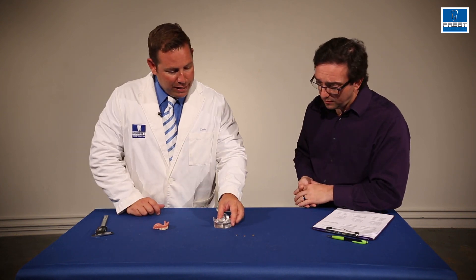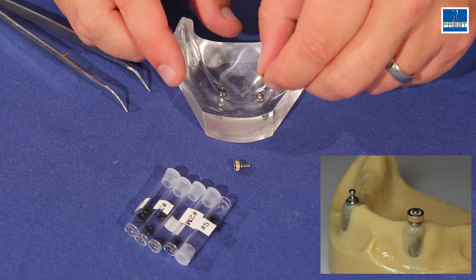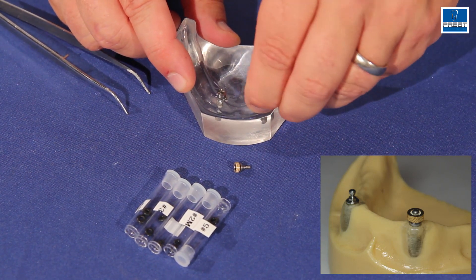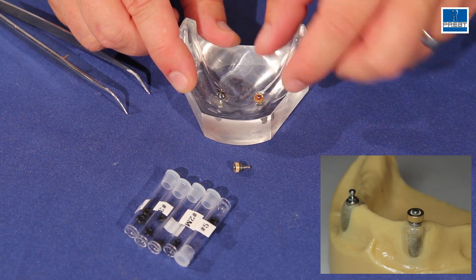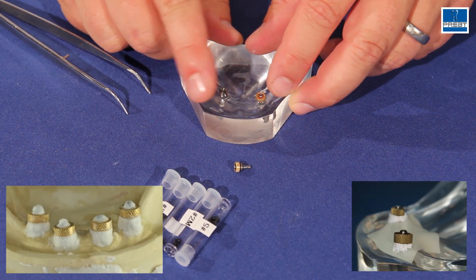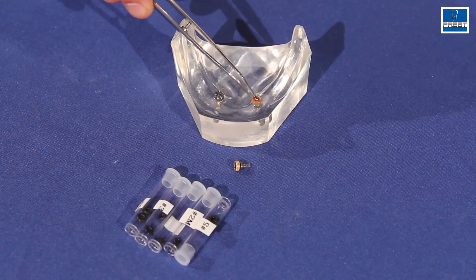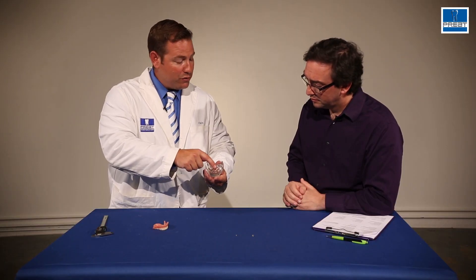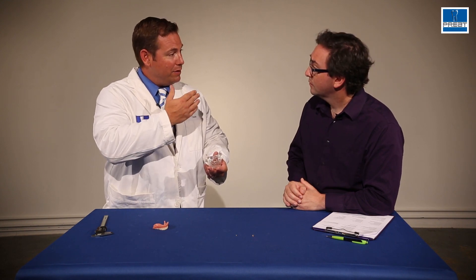It's pretty easy to pop them on and off. We have two different styles of housings. One is the opener donut-style housing — it's much lower profile and takes less space. You can just pop it on quickly. The only negative to the donut-style housing is that you need to block out the head or the top of the post during processing. If you imagine this inside a denture with acrylic on top, the first time the patient bites down there's movement, because O-rings are the most resilient attachment — it's why they're used on many implants.